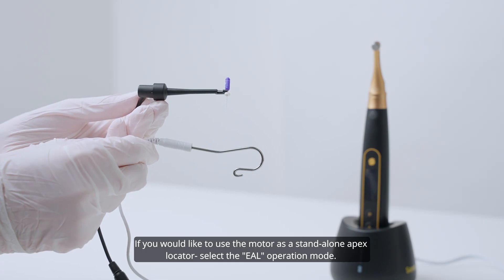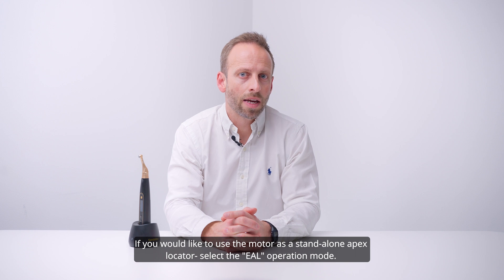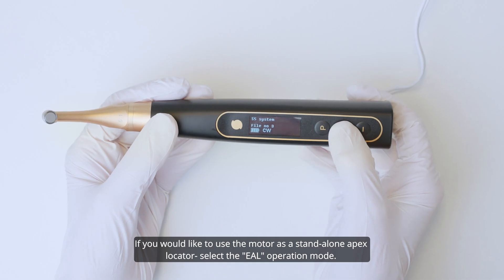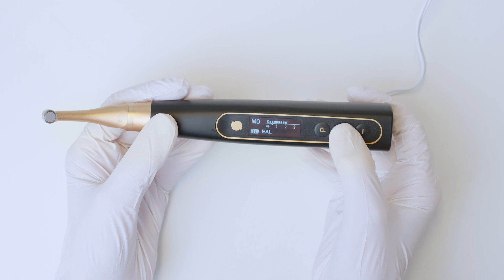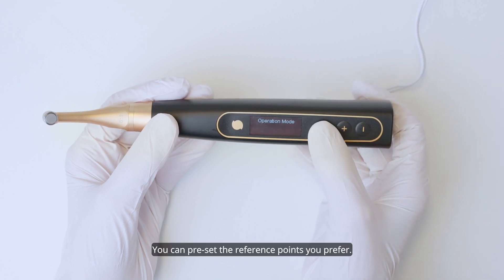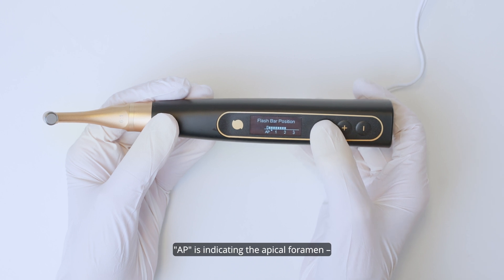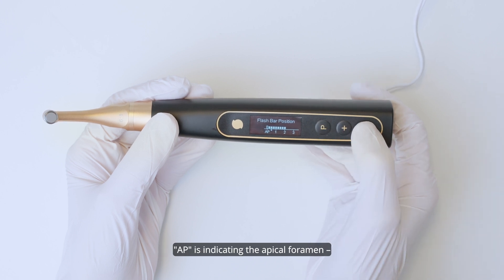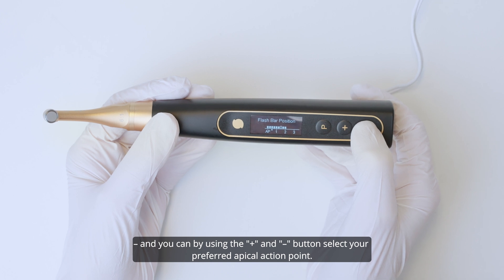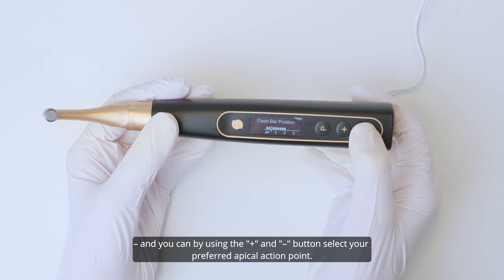If you would like to use the motor as a standalone apex locator, select the EAL operation mode. You can pre-set the reference points you prefer. AP is indicating the apical foramen, and by pressing the plus and minus button, you can select your preferred apical action point.